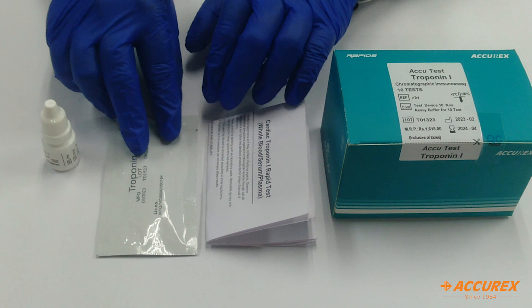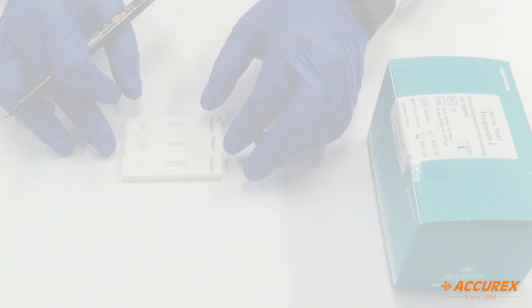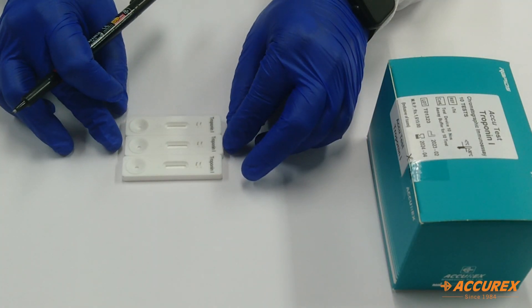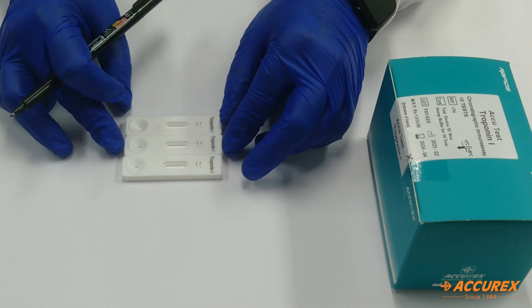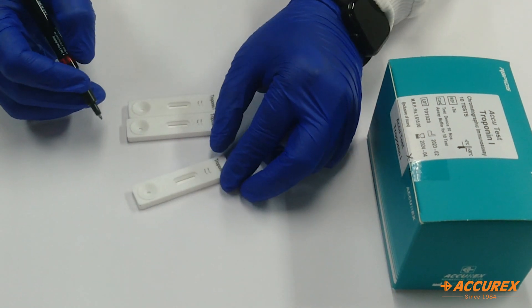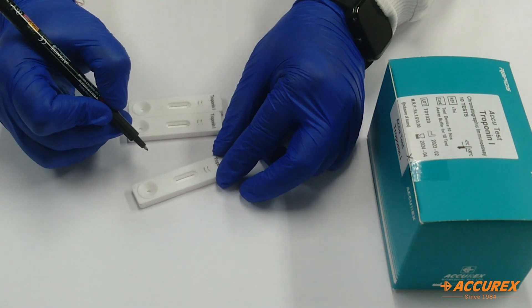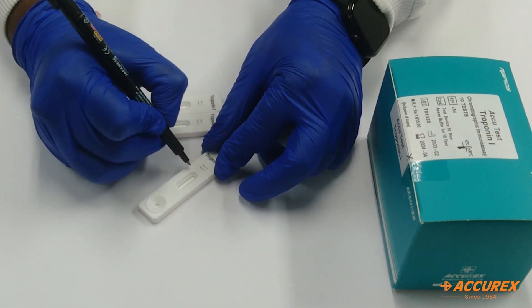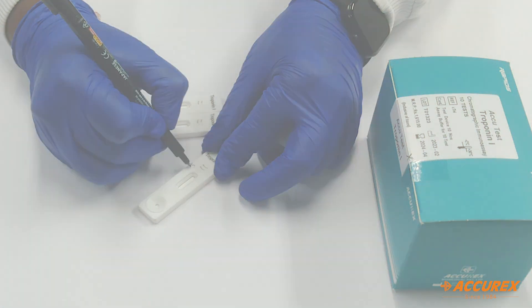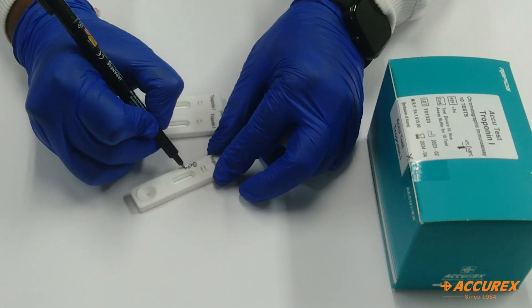Now we will see the testing procedure. I have taken one card from the pouch. Before testing, I will write down the patient name and date so that it will be used for future purpose.